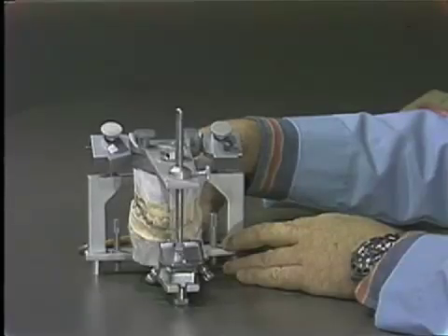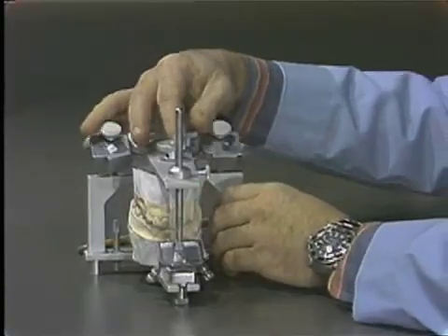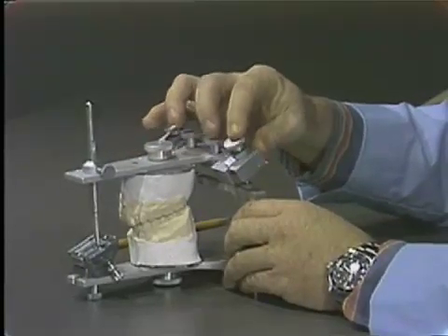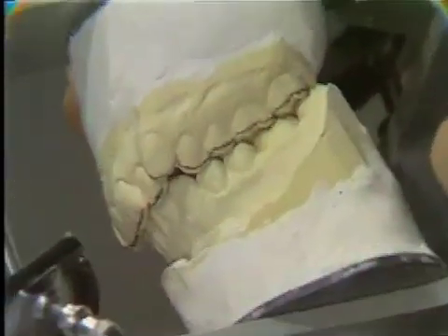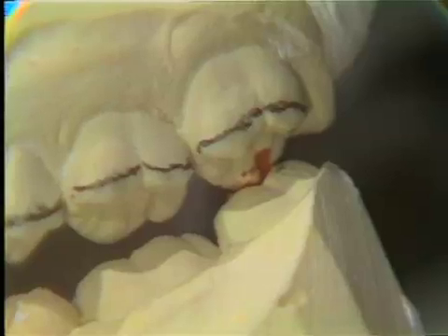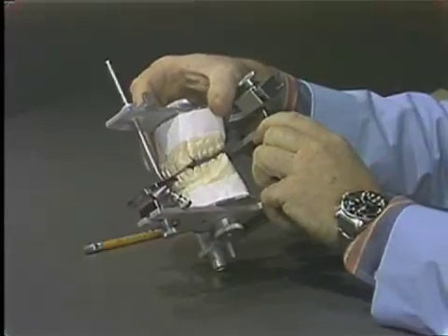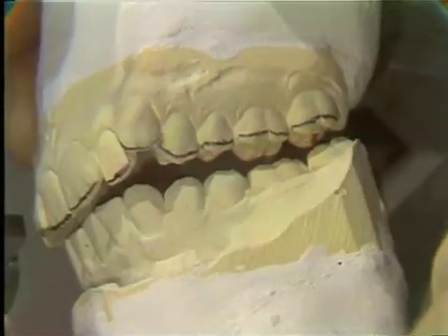Stone casts are mounted on a semi-adjustable articulator, as near as centric relation as possible, with wax bites in lateral and protrusive to set the condyle. On analysis of the casts, you will notice premature contact in the molar region. Our objective is to increase the vertical dimension to clear this contact by at least one millimetre. You will notice we have now got a millimetre clearance.